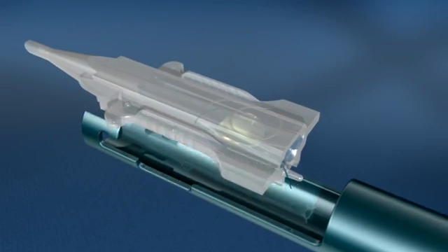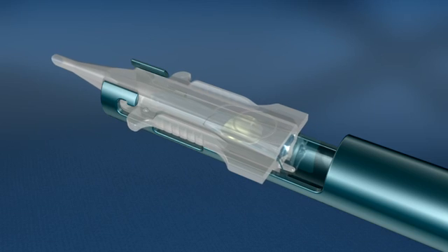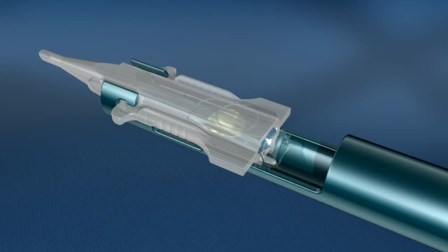Once the lens is in place, the cartridge should be advanced into the handpiece until a click is heard to confirm that the cartridge is properly loaded into the tip of the Monarch handpiece.